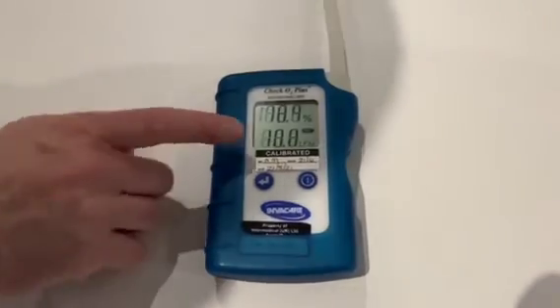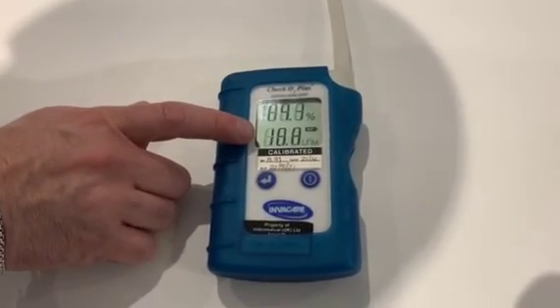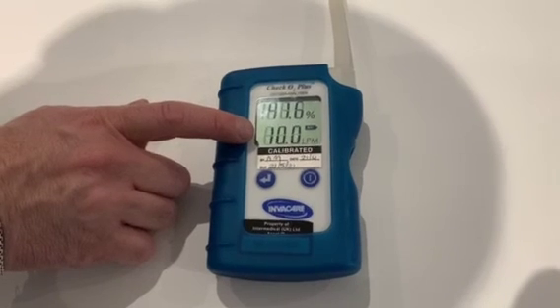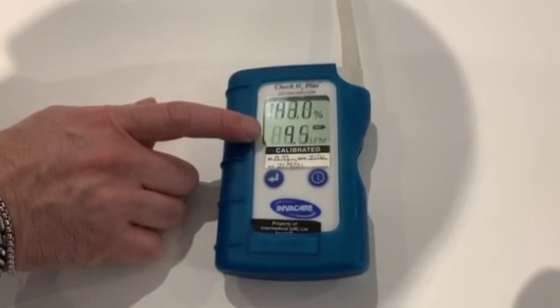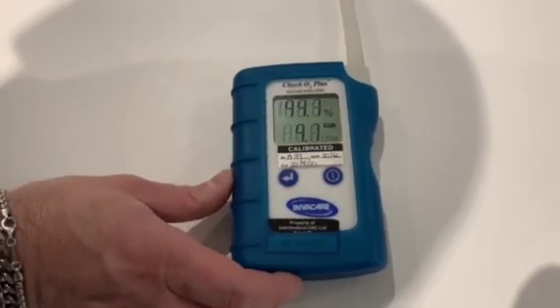You can see that the flow is 10L per minute — exactly the same as two concentrators being put together. We'll let it stabilize in a minute.